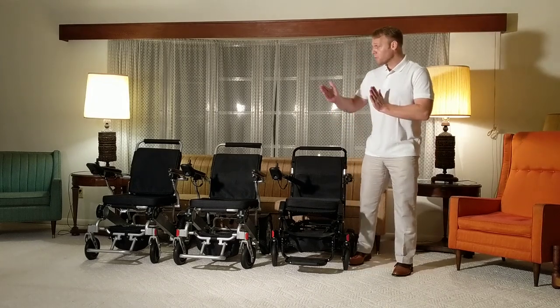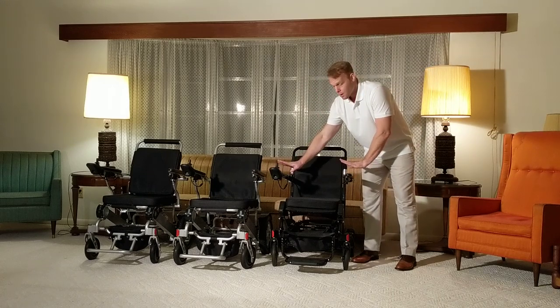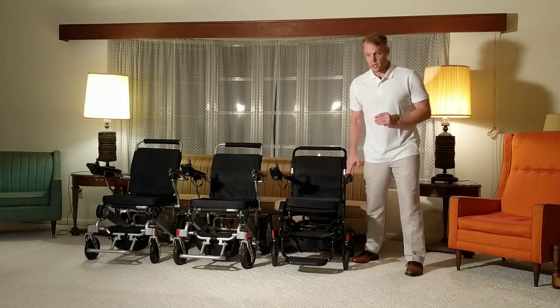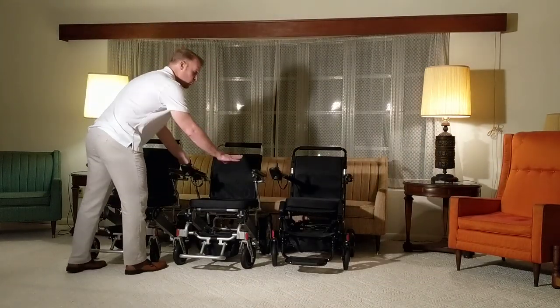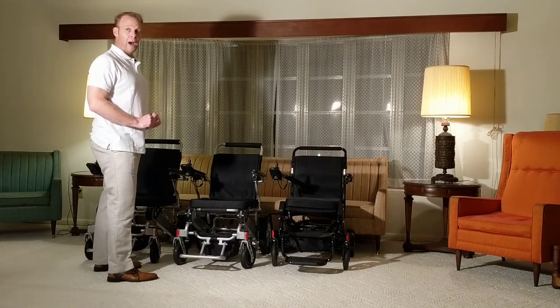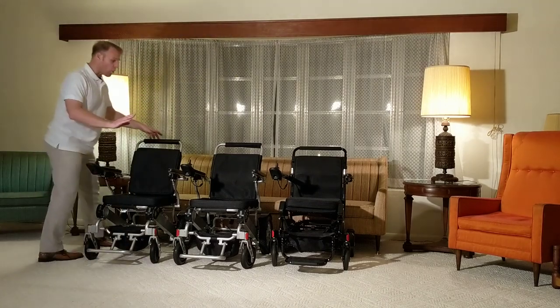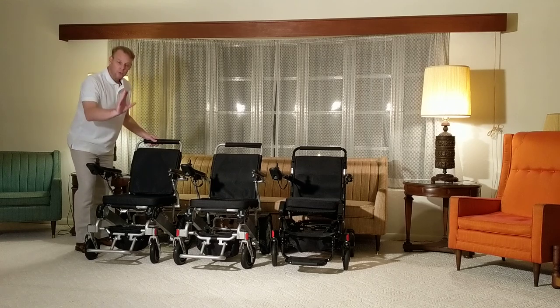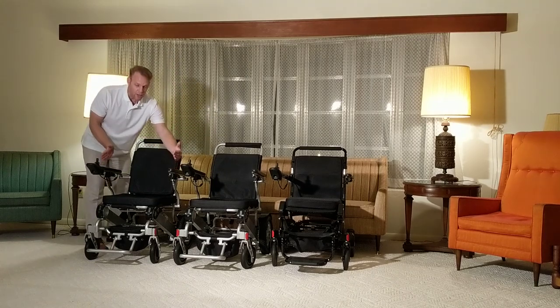What we're going to do in this video is examine the lightweight portable Airhawk folding power wheelchair, compare that to the refurbished AHXLS folding power wheelchair, and then take a special look at the specialty-made Electra 7 power folding wheelchair with the wide version.